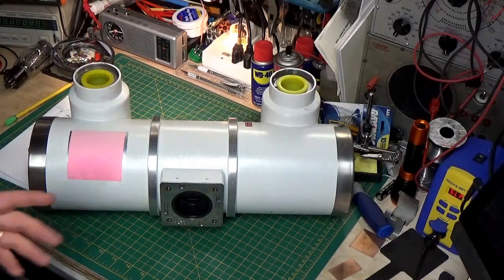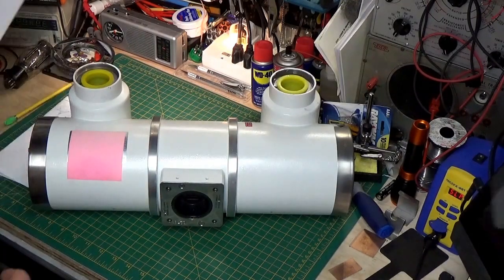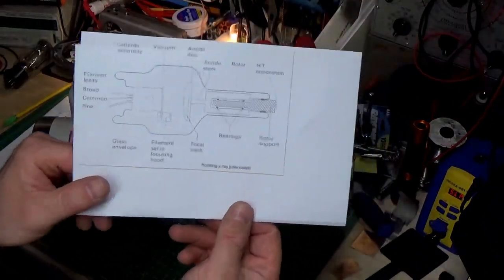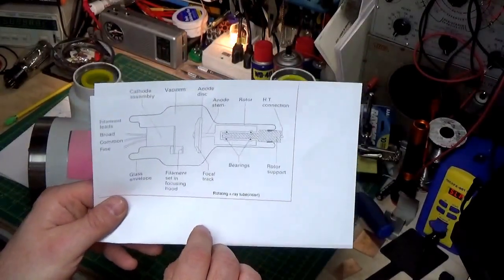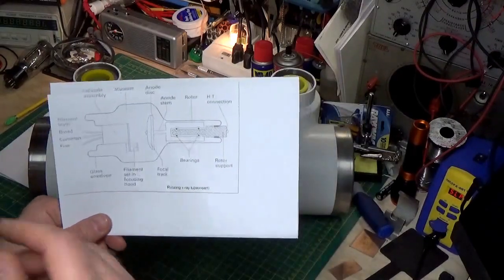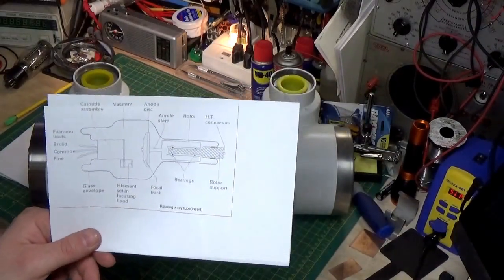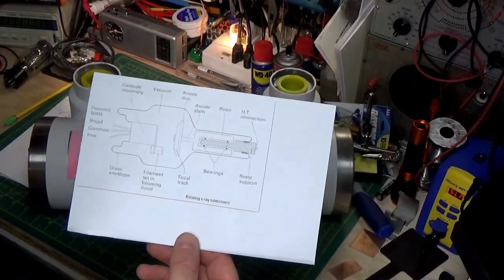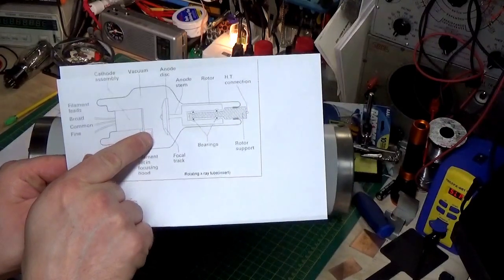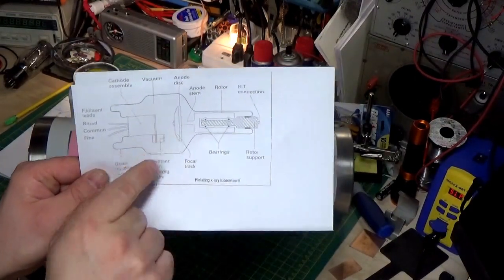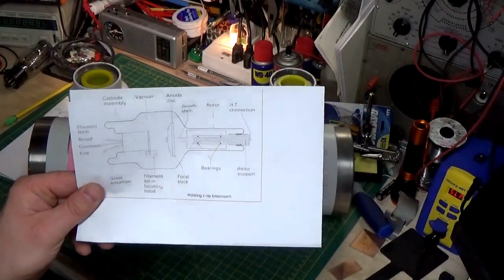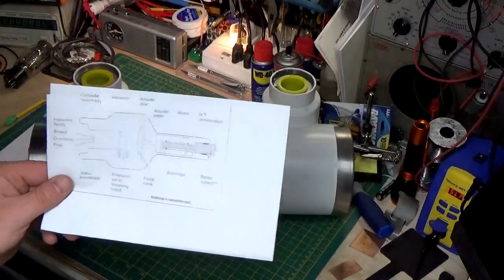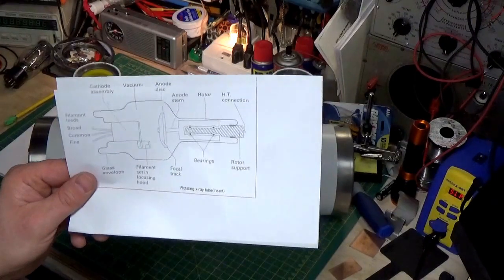Now, a little bit more about how this thing works. If you look at our little diagram again, you'll see a few things here. This is a modern tube. The old X-ray tubes look almost like that 5U4, very simple. A filament and a little piece of metal for the target, which was your anode. But the problem is, when you take an electron beam and accelerate it at very high energy to that target, it won't take long before that will turn white hot and melt and burn right through.